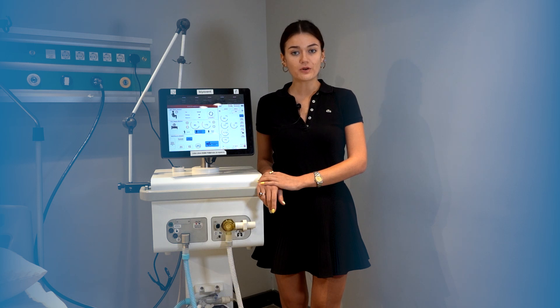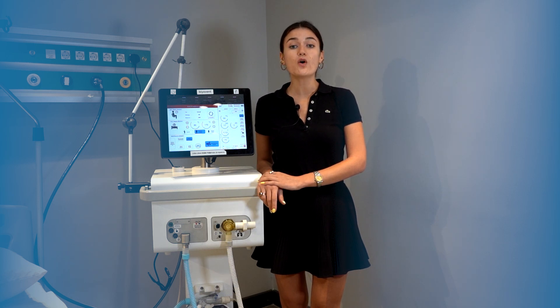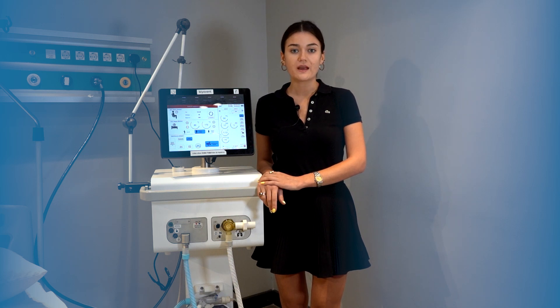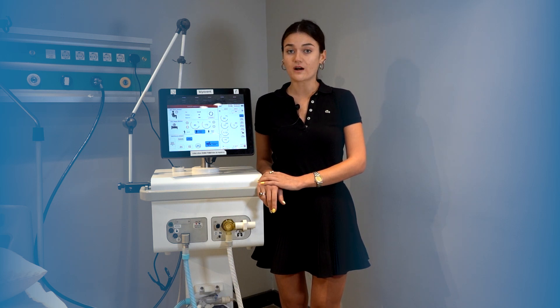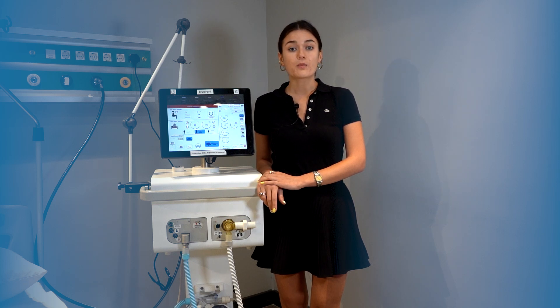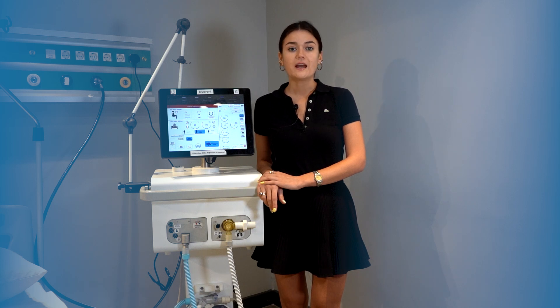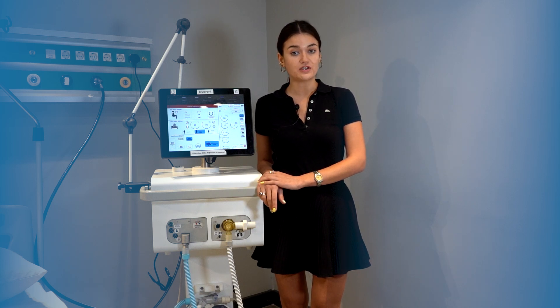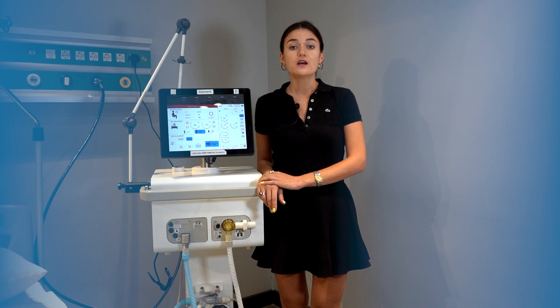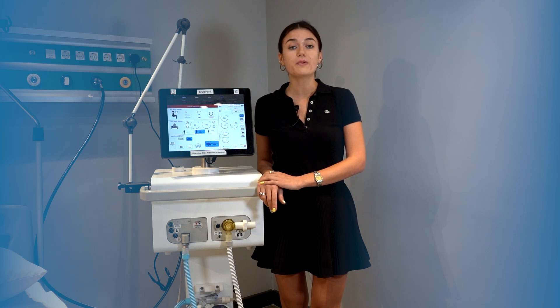In respiratory support devices, spontaneous modes are designed to support the patient's own breathing efforts or to reduce managed ventilation. These modes are used to support or manage the patient's respiratory efforts, providing respiratory support for those in need of ventilation. Each mode has its advantages and is suitable for specific clinical situations, chosen by respiratory specialists based on the patient's condition.